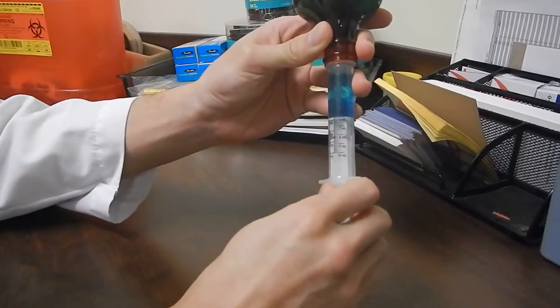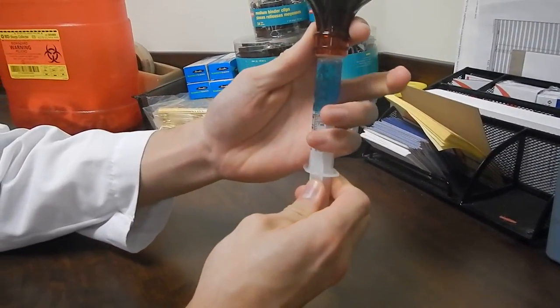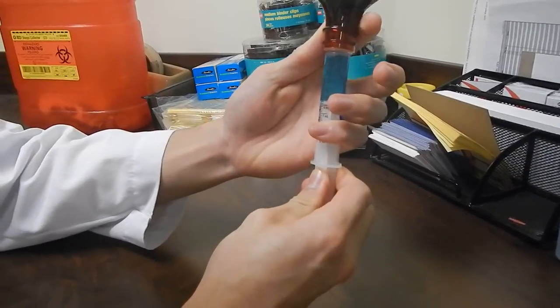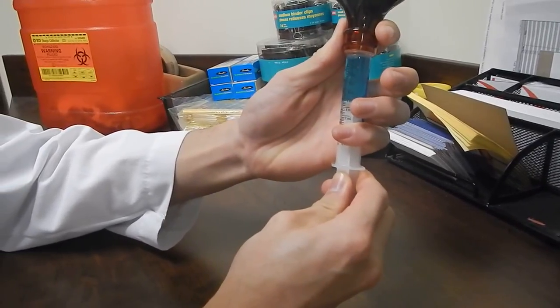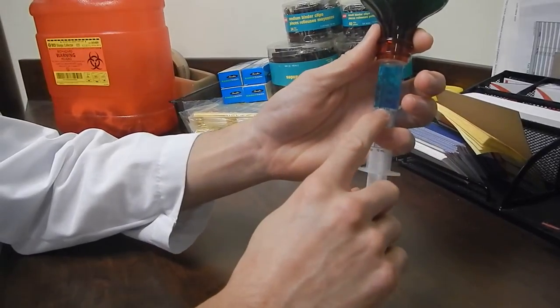It's okay to pass the five mark initially, because you will have an air bubble that you're going to have to get out. And so to do that, simply push up and line up the top of the plunger with the five milliliter line.